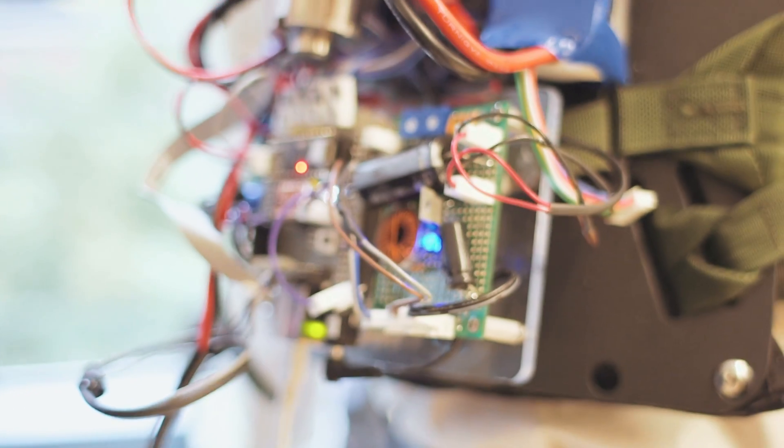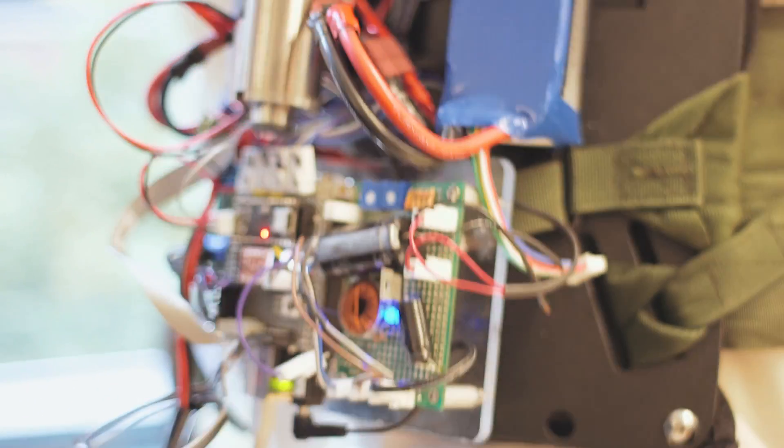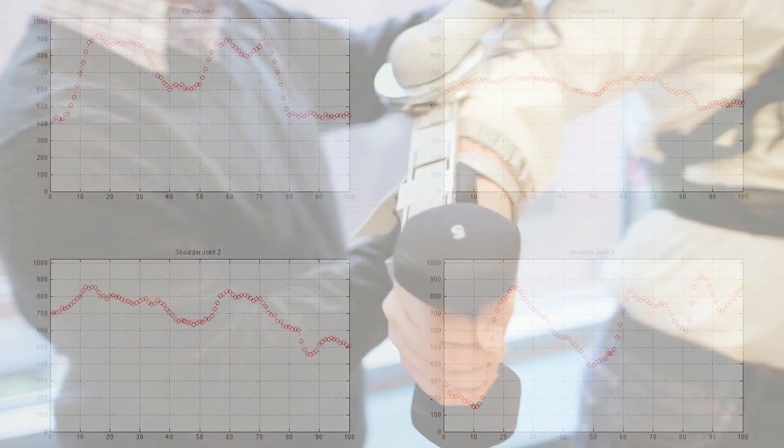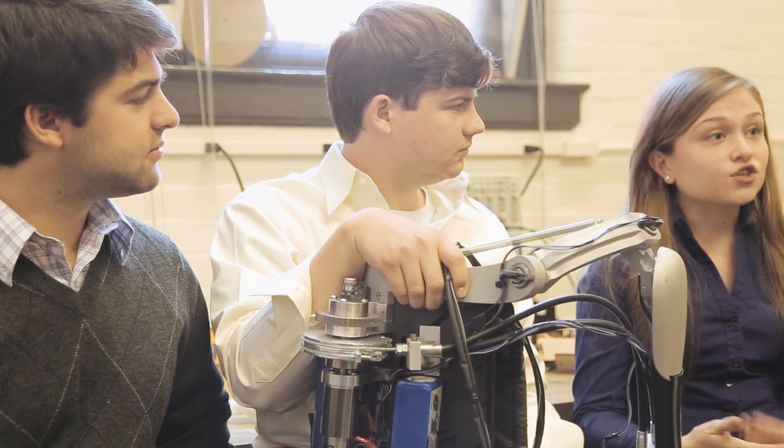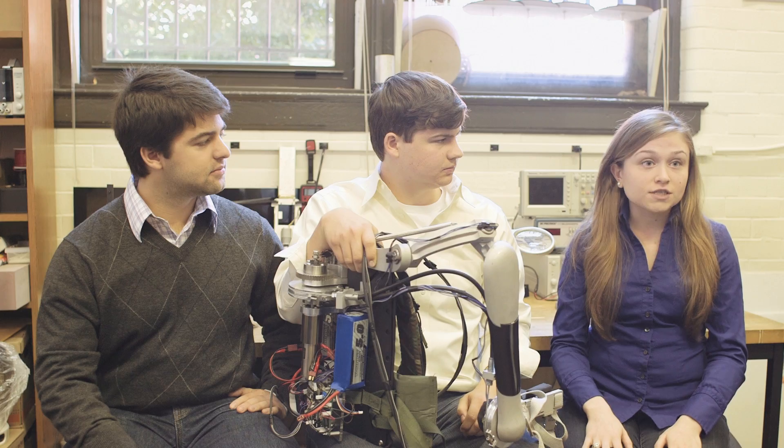We have sensors that can track the user's range of motion when they're wearing the arm. A patient can upload this data to their doctor so they can see how much they're improving in their range of motion over time.